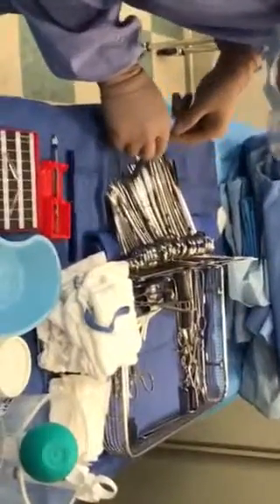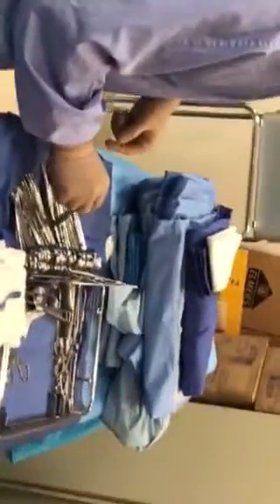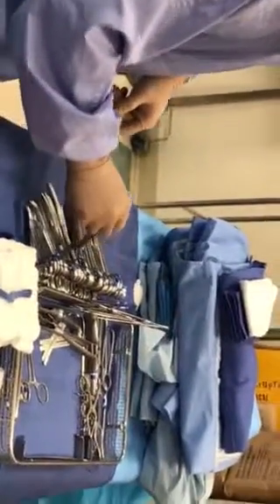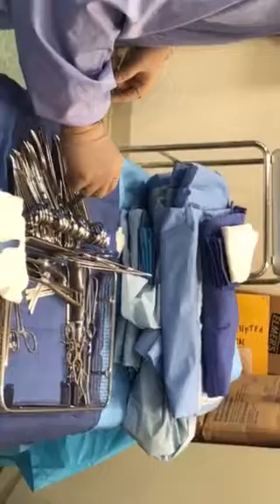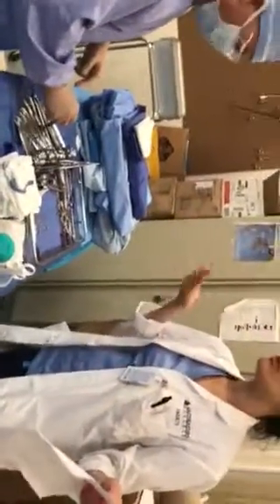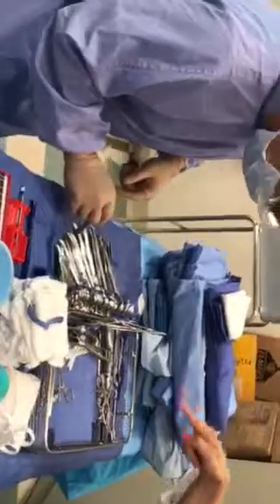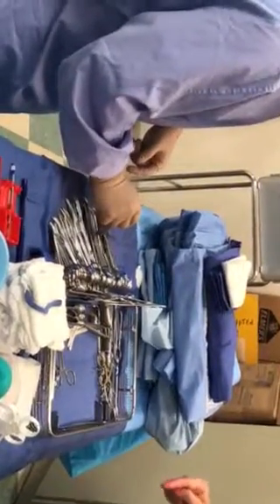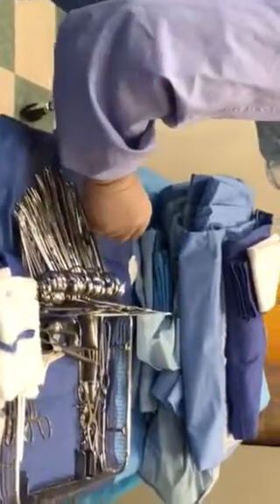Kelly's: four — one, two. Curved Kochers: one, two. Allis clamps: two small and two large. Babcocks: two — one, two. Adson or tonsil clamps: one, two. Right angles: two. Needle holders: one, two, three. Sponge sticks: one and two. Straight Kochers: one and two. Tenotomy scissors: one. Curved Metzenbaum long: one. Short Metzenbaum: one. Curved Mayo: one. Straight Mayo.